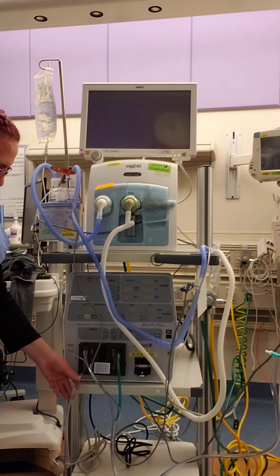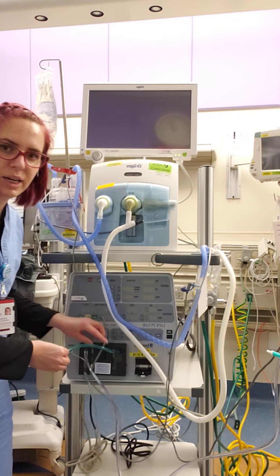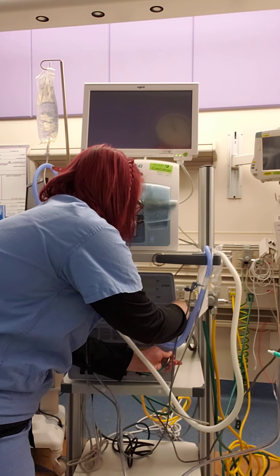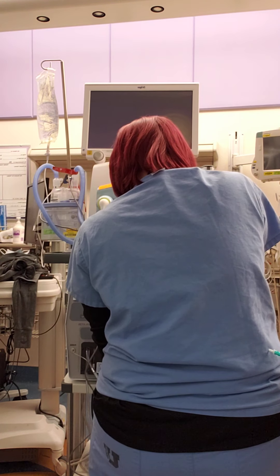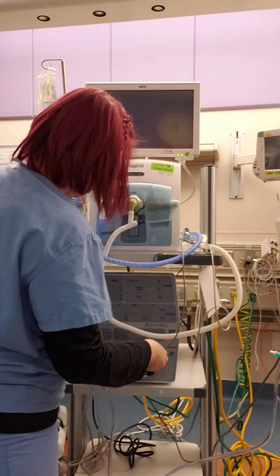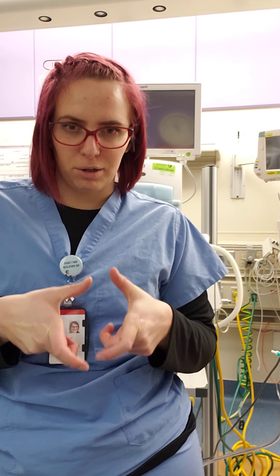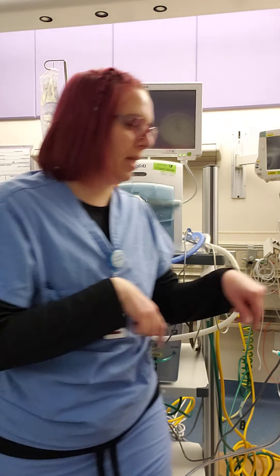If for any reason the ventilator needs to be moved, it's going to stay connected to the bed and won't fall off the side — which we don't want. The other part is we have this green tubing connected to our cartridge; it connects to the gas out on here. I'll make sure to put some good close-up pictures in our theory so you can see this up close. That gas outlet is also where you will put the analyzer or the injector line cartridge for inhaled nitric oxide.